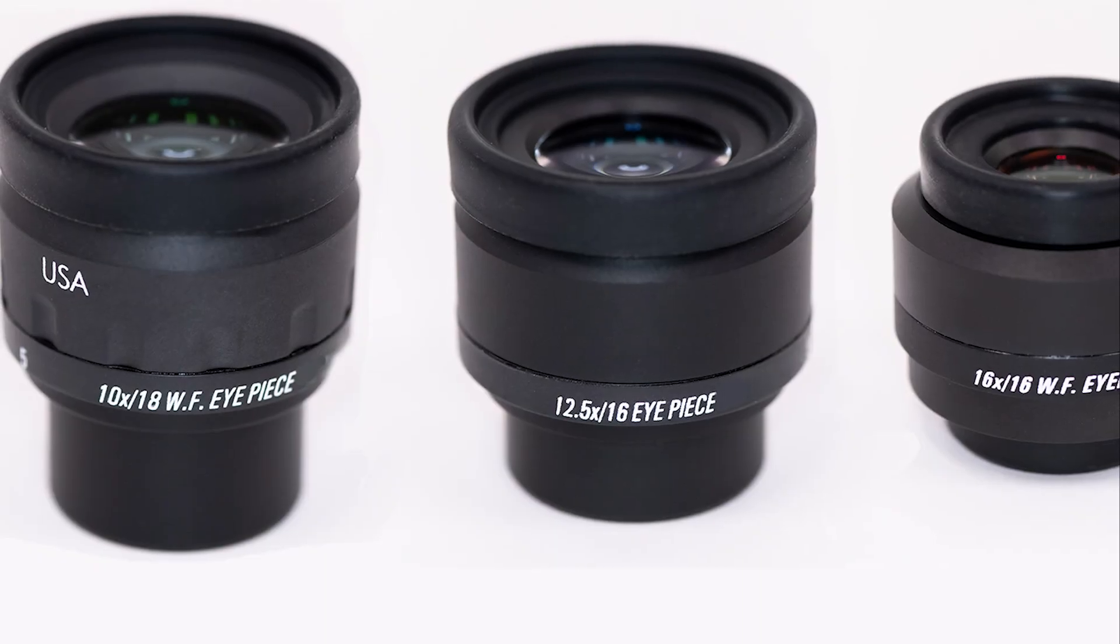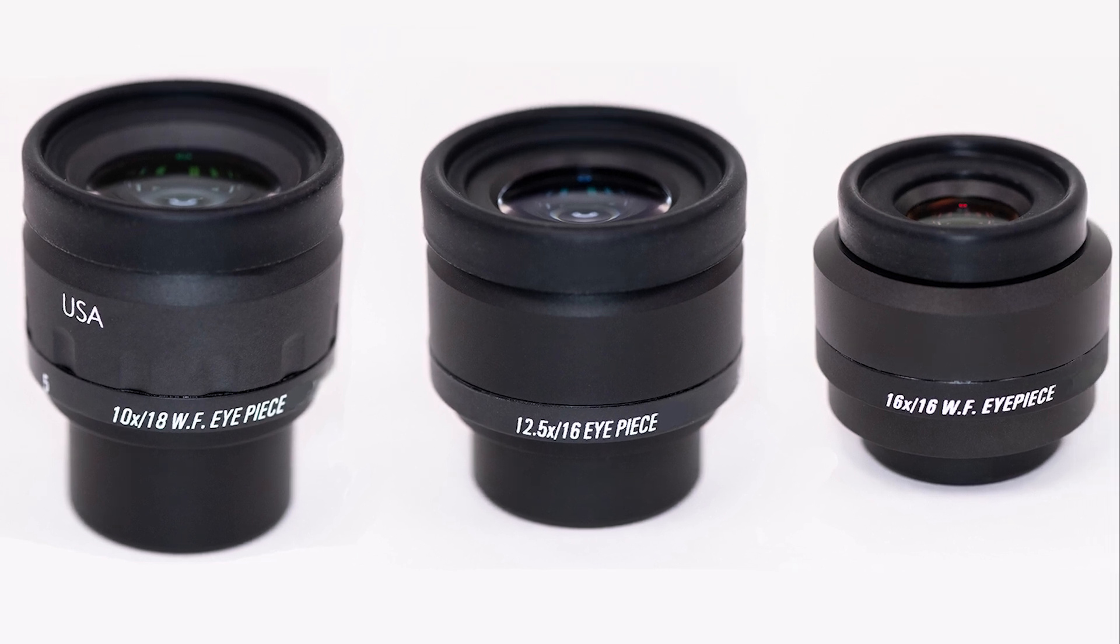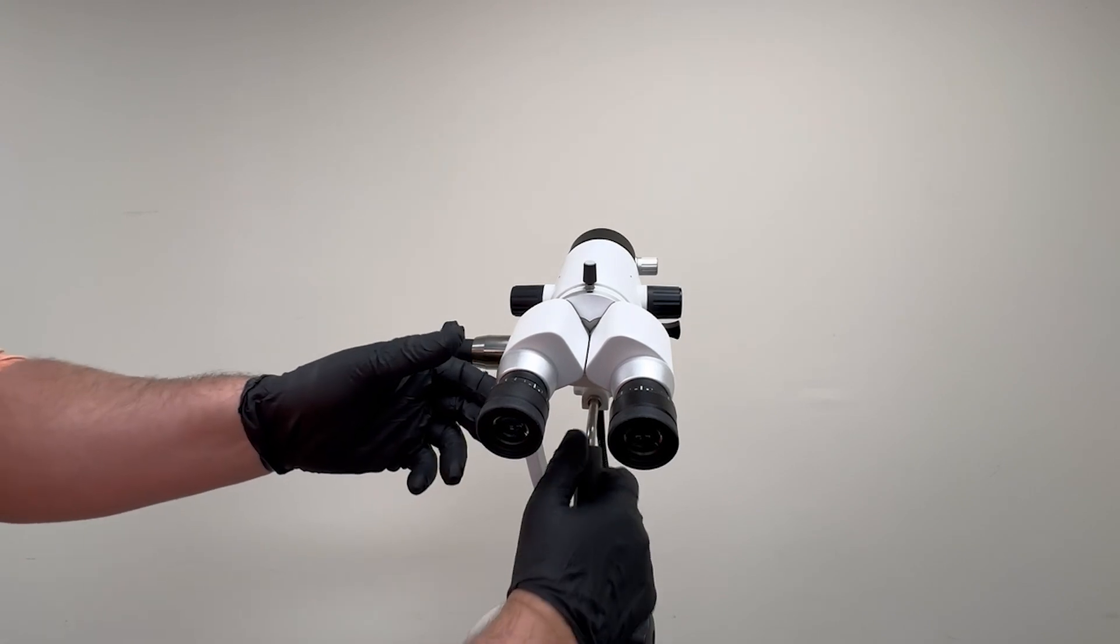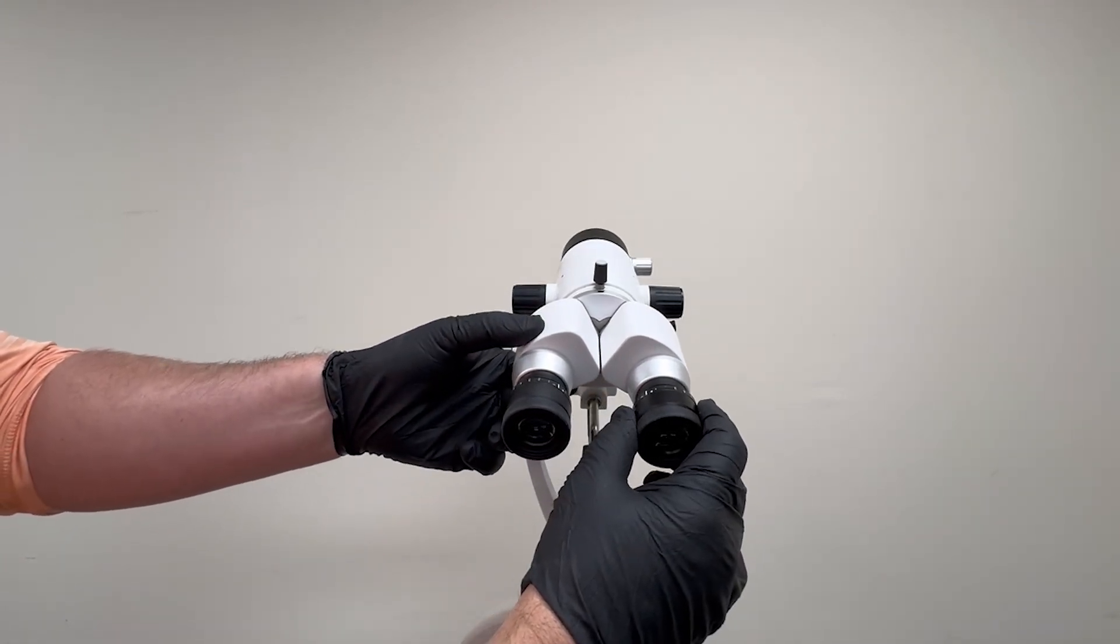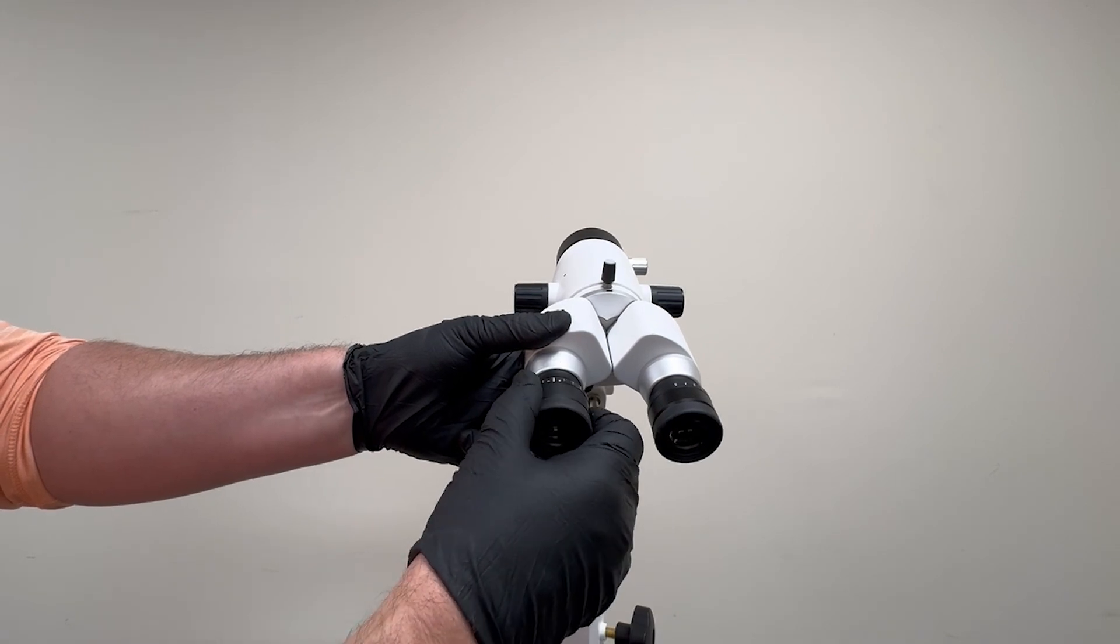The binocular heads come equipped with a range of eyepieces, including 10x, 12.5x, and 16x magnifications. Each eyepiece features an advanced micro-focus mechanism, enabling doctors to personalize the Colposcope's focus according to their individual visual requirements.